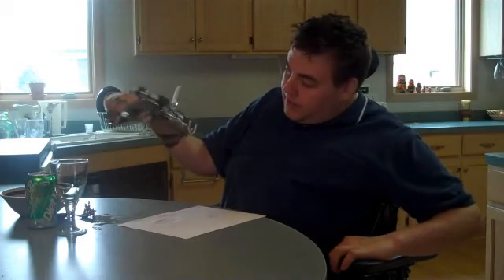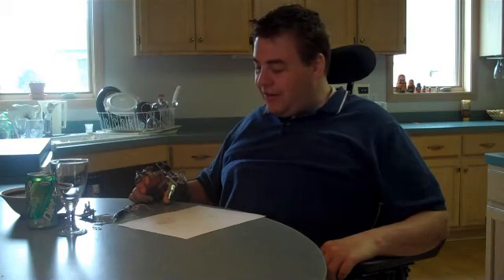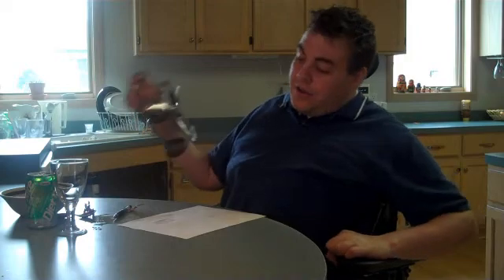With the Power Grip Assisted Grasp Orthosis, even somebody who has floppy wrists — which I do on my right hand — gets their wrist stabilized. You don't have to wear a passive wrist splint. Of course it does look a little different, but when you are wearing it people are absolutely fascinated by the additional function you get, and you quickly forget about it. Don't be concerned about cosmetic issues — I think that's quickly eliminated. If you really are very concerned, you can easily take the orthosis on and off when you're not using it. However, I like to put it on in the morning and leave it on all day until I go to bed, as do most of our customers.